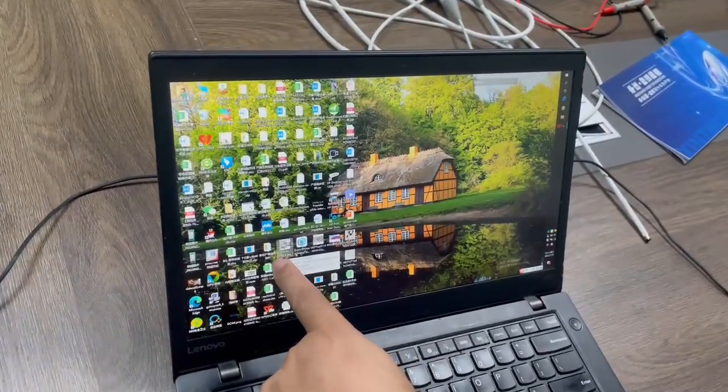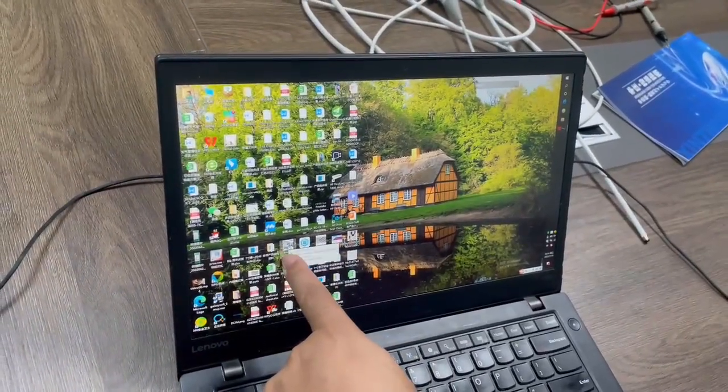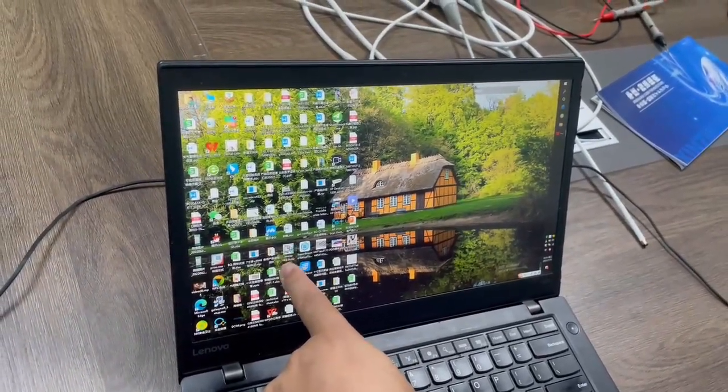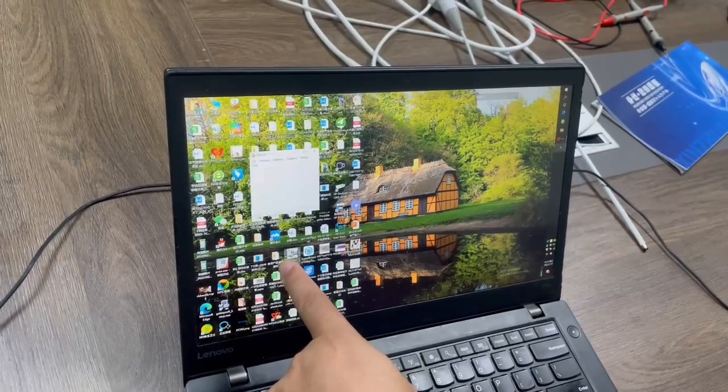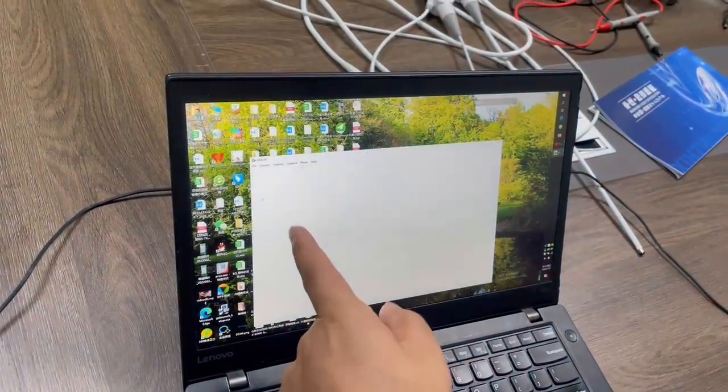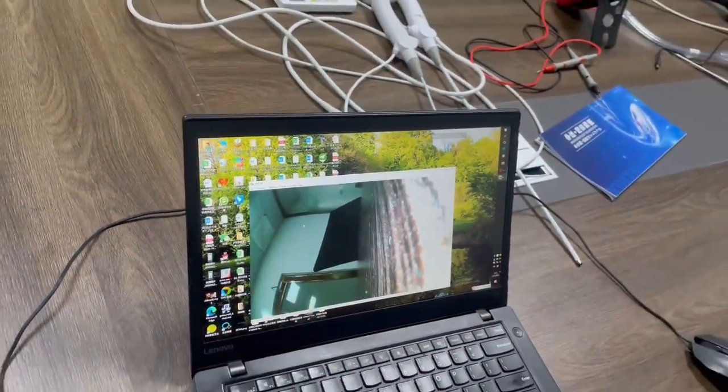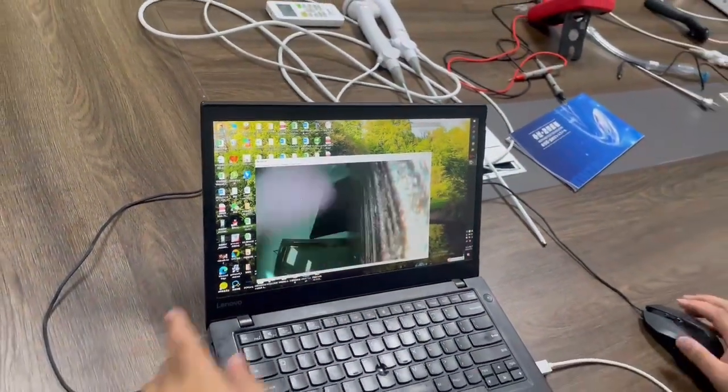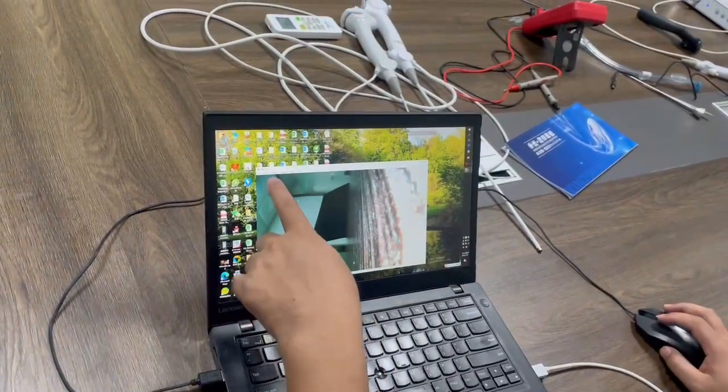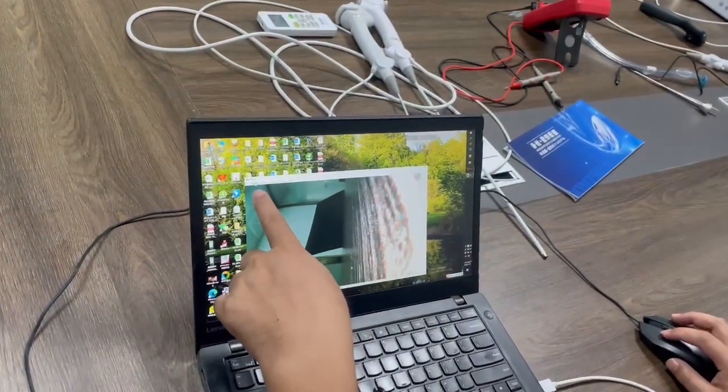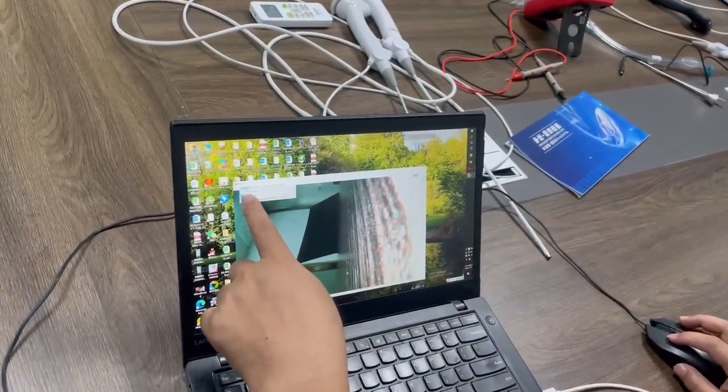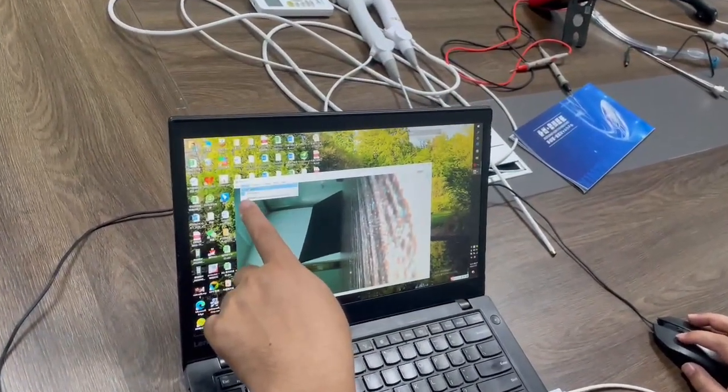You can see this software, this one. First, we open it. And second, we need to find the devices.